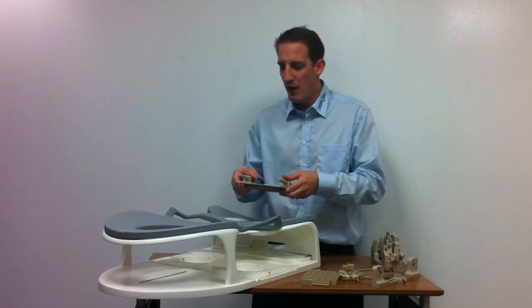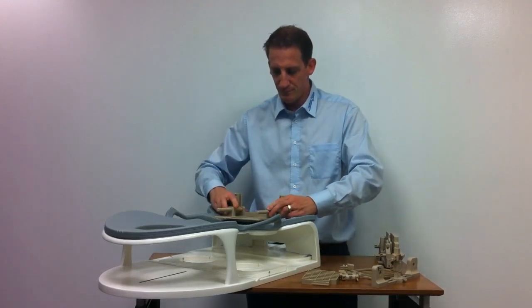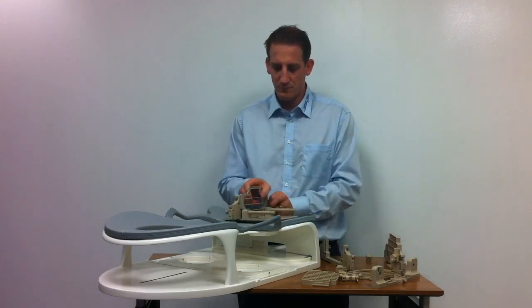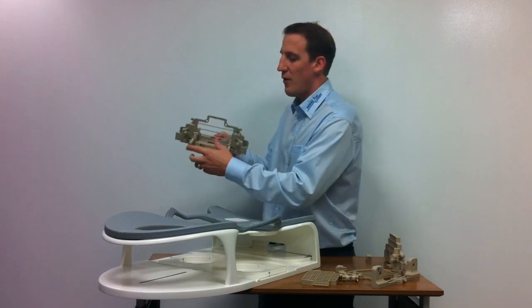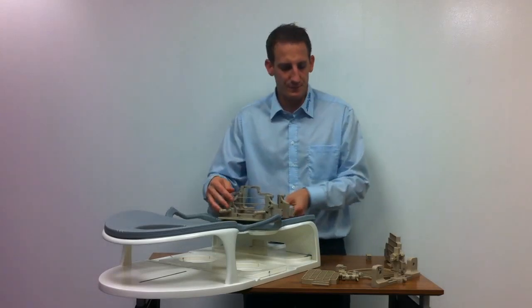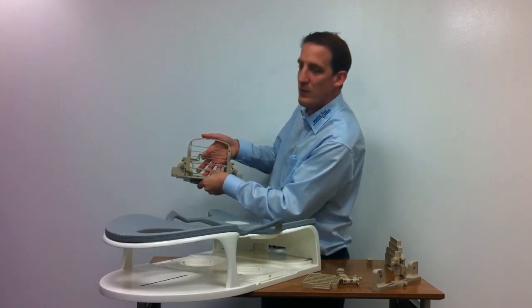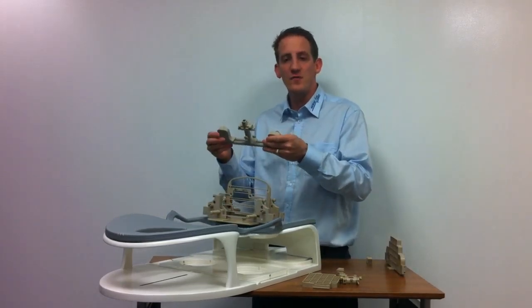First I would like to show you the post and pillar and how to set it up. You'll have to attach two frames — the lateral frame. We have two of those bars here. The longer bars are for lateral and the shorter bars are for medial. To the lateral frame I attach the round sled plate, which can be adjusted in height in 10mm increments: 10mm, 20mm, 30mm. And then to the front of that I attach the post and pillar system, or the positioning system.